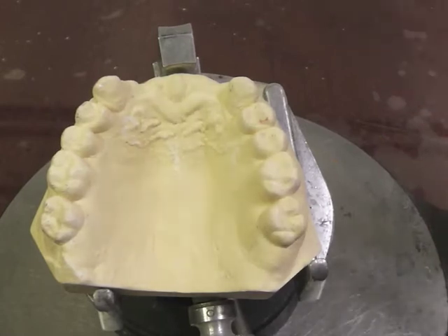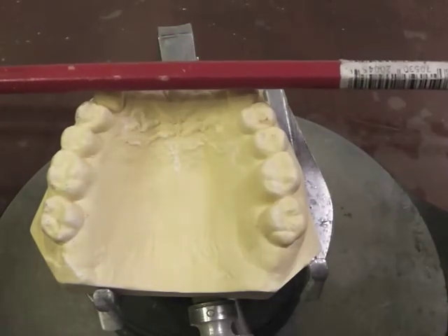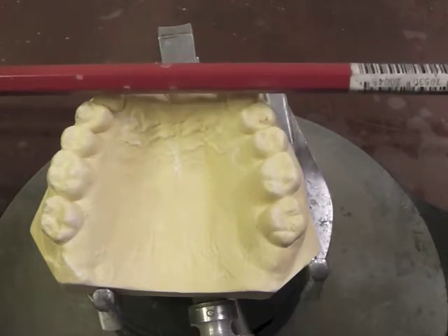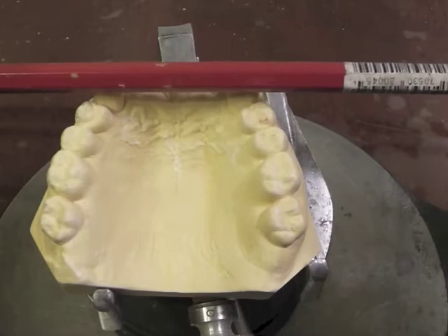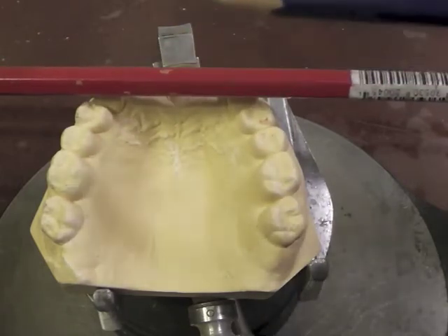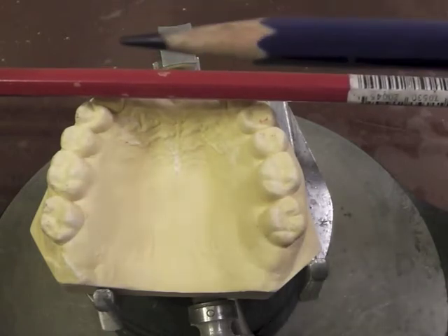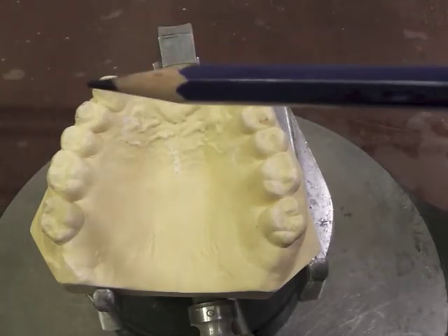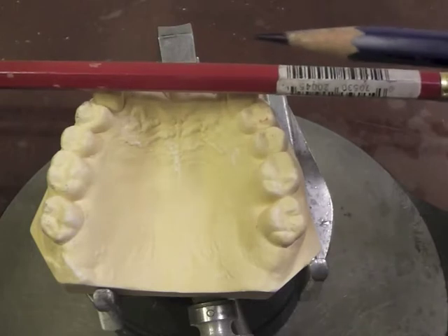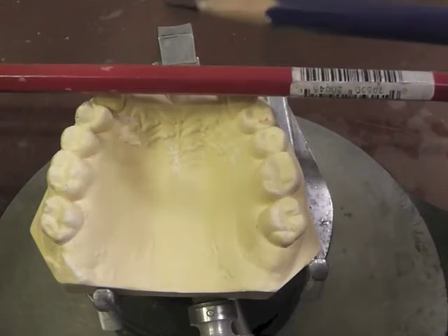In looking at the Kennedy Class IV, we start out by placing something across our fulcrum line. The fulcrum line on a Kennedy Class IV is through the two most anterior abutments. When a patient eats sticky foods, the partial wants to lift up in this direction, and we want to prevent that by placing clasps near our fulcrum line — preferably in front of our fulcrum line — to prevent that rotation.